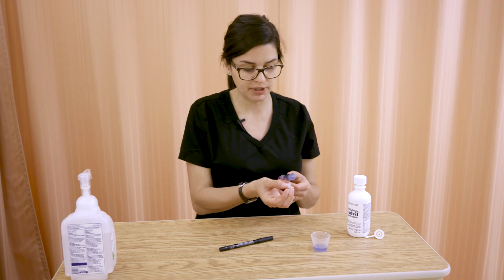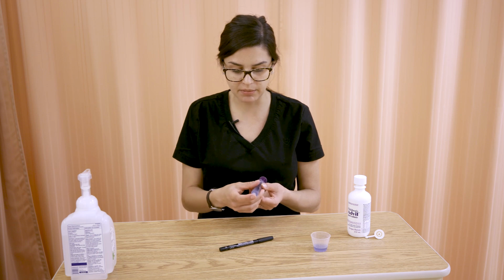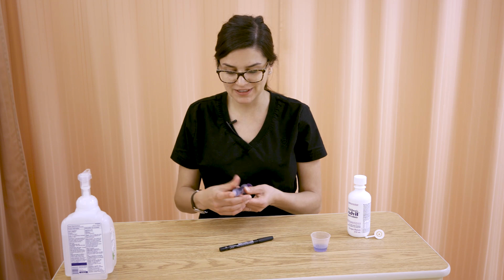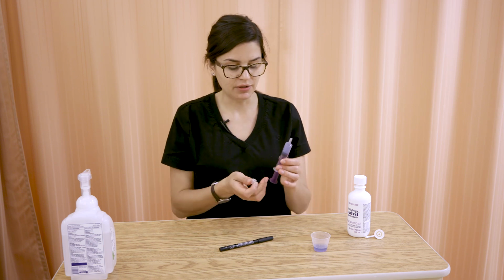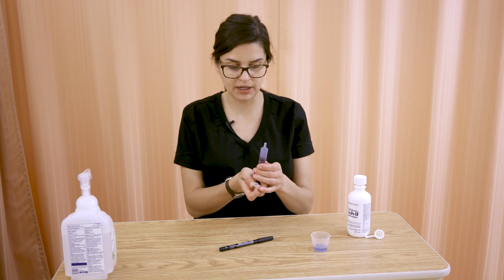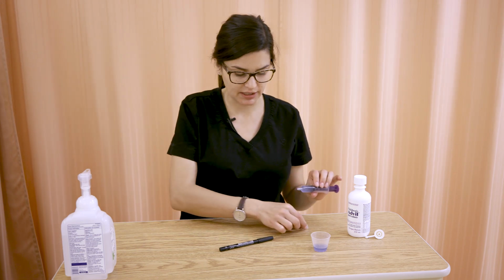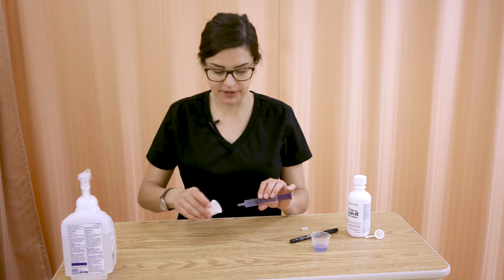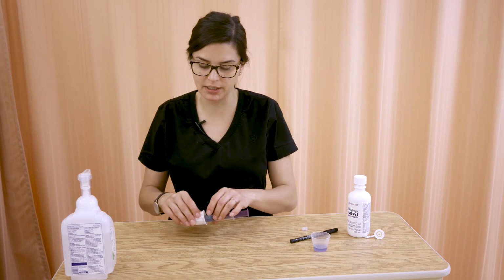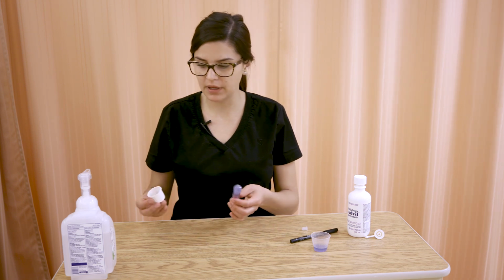You can recap it. Just be cautious if you do recap. Sometimes it pushes the fluid down a little bit, so when you go to take it off, of course, there we go, you might think, oh, I maybe don't have 5 mLs now. So you could recap it just by putting it on very lightly. Or you can take a paper med cup and just place it over the top, so it's protected when you're taking it to the patient's bedside, when it's on your tray or in your cubby, etc. So just like that is okay.